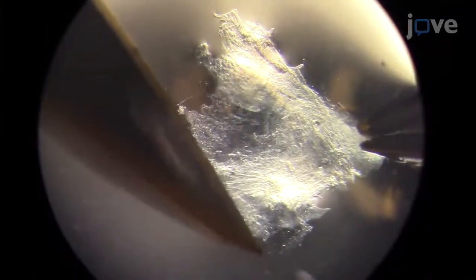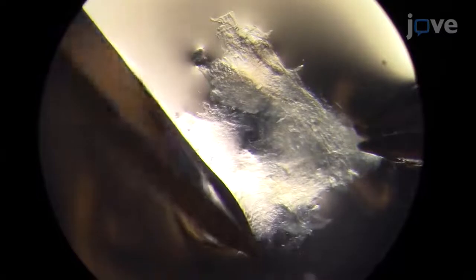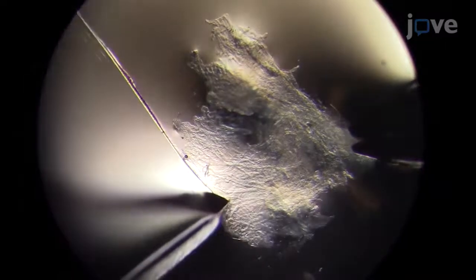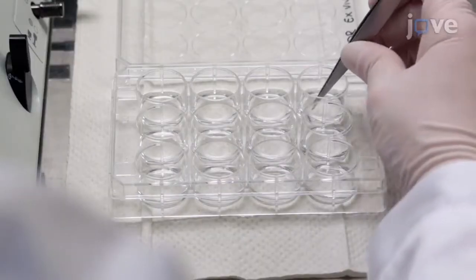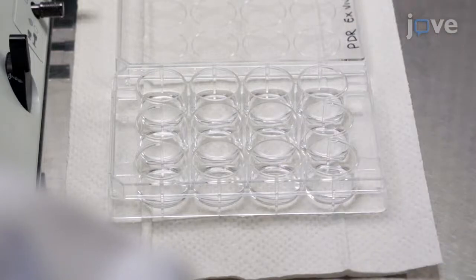Submerge the tissue in PBS and hold the tissue in place with microdissection tweezers. Make clear cuts in the tissue with a sterile scalpel, taking care to avoid tearing the fibrovascular tissue. Place each individual piece of tissue into a well of a 12-well cell culture plate containing 1 milliliter of sterile PBS.